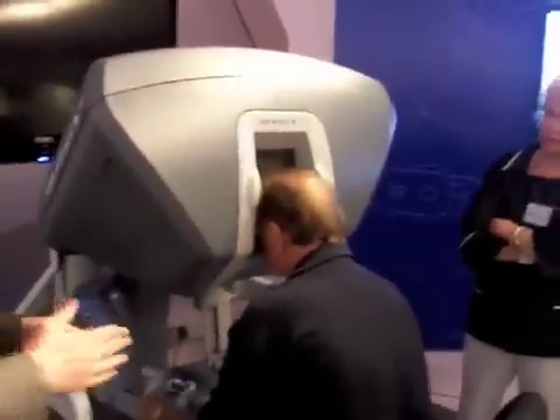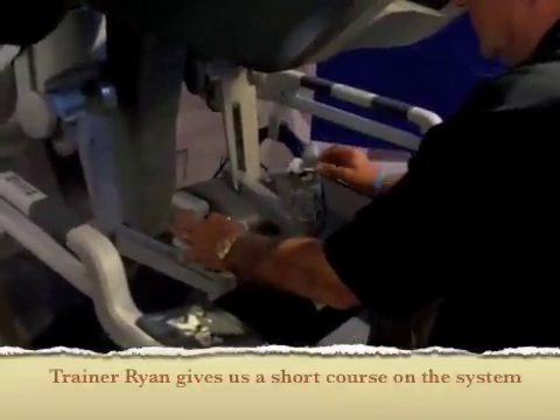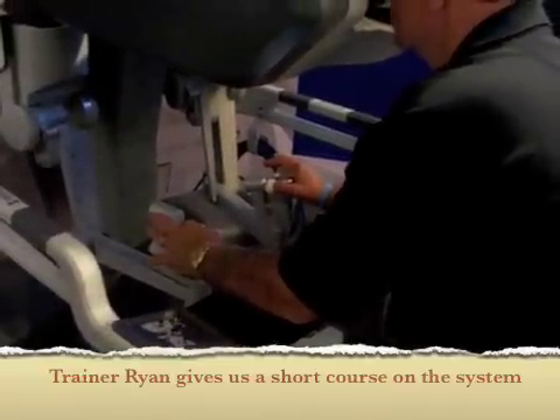So with your head in, you'll take control of these two hand controls here. You're going to use either your thumb and index or thumb and middle finger, and just place them inside the straps. It's a very light, delicate touch with the instruments when you move them.